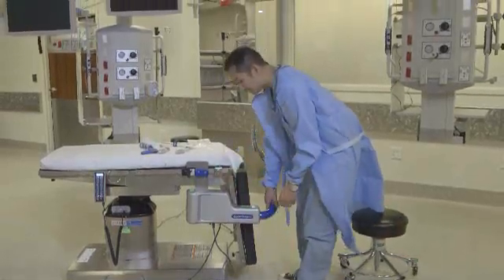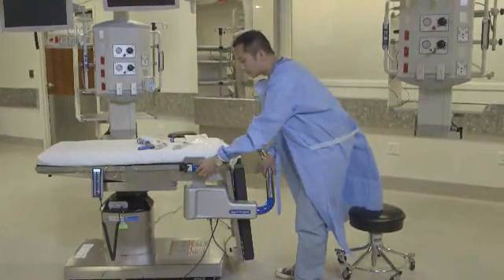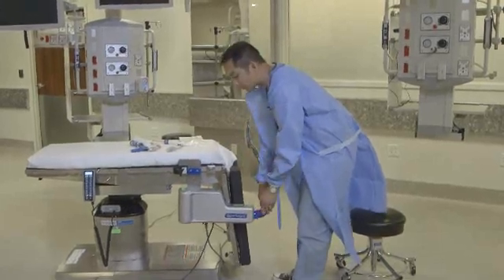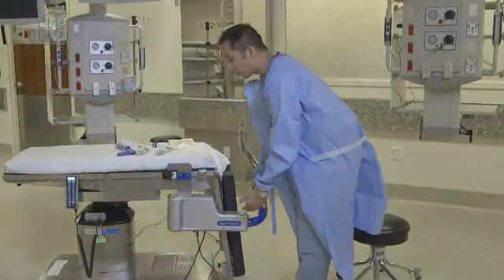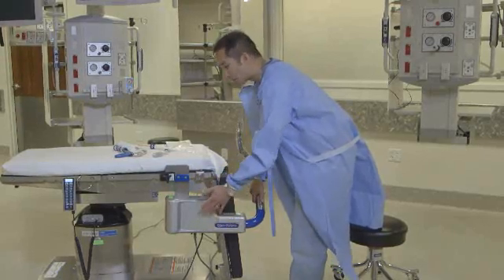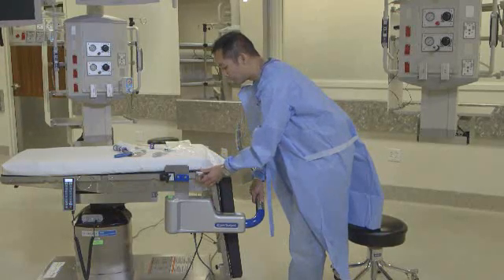Something you need to keep in mind is the coloration on the Ally UPS. It's there for a particular reason — to distinguish for you where you're going to hold this device when you pick it up. This will normally come on a cart, which is where it's housed. The cart can be brought up to the side of the table, and then you can pick it up off the cart and mount it on the table rail.